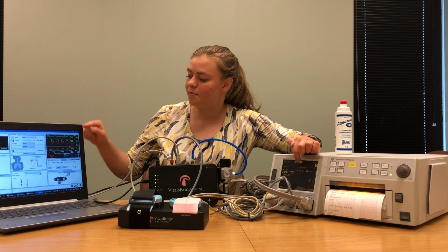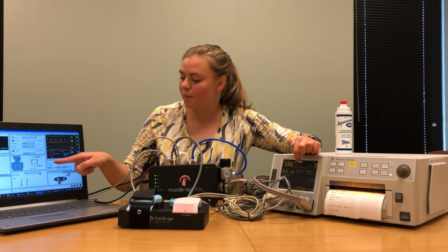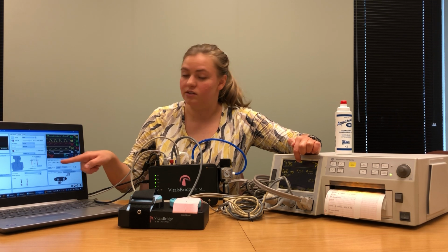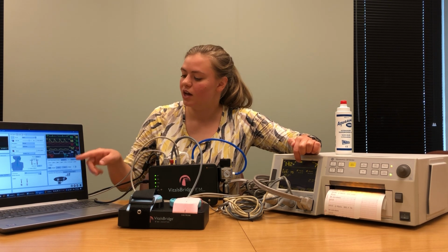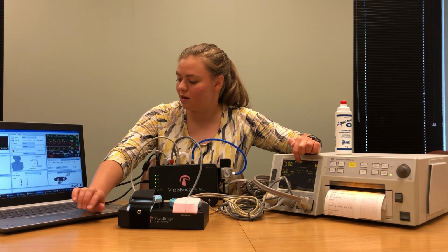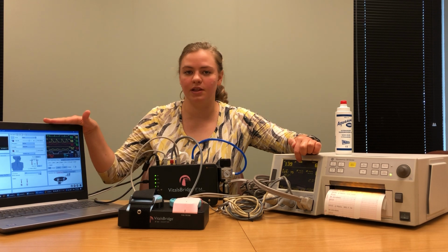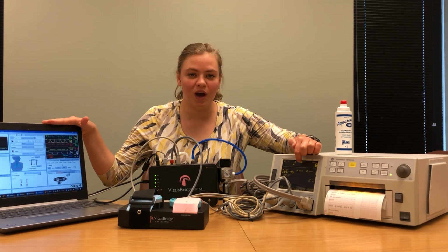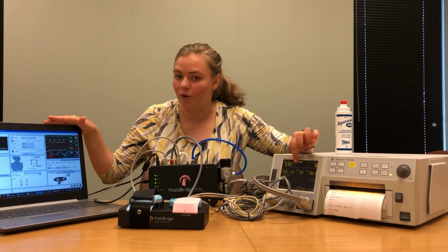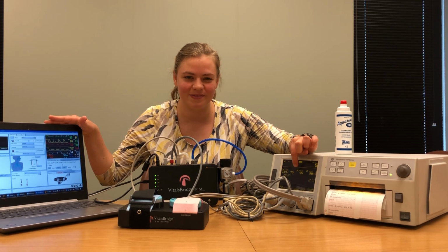and underneath the patient monitor on your screen, you should see a bunch of boxes with vital signs in them. Select the boxes for the vital signs you would like to display, in my case, SPO2. These check boxes tell the simulation software that you do have a VitalsBridge connected and those vital signs should be displayed. Once you've selected that box, you'll notice that the SPO2 saturation level and the pulse have reappeared.